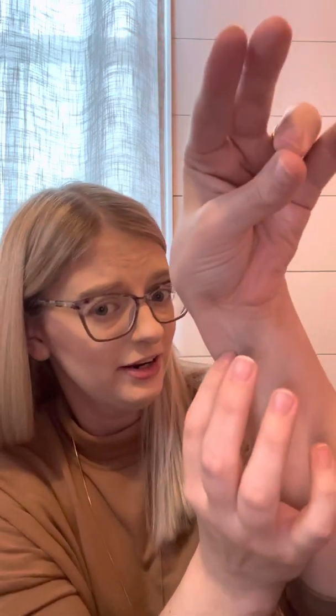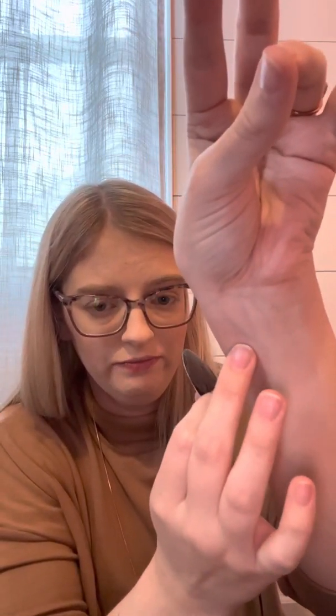There will be two vein-feeling things and they should kind of pop out just a little bit. Mine are right here — two of them side by side. These pads have a little stem in them and you want that stem to go in the middle of those two nerve points.